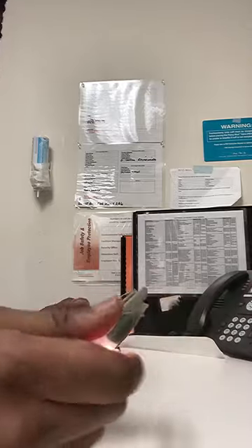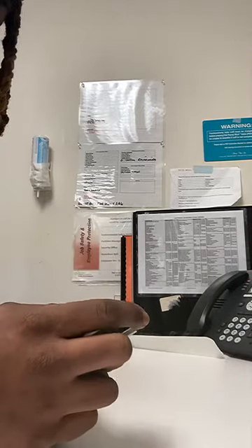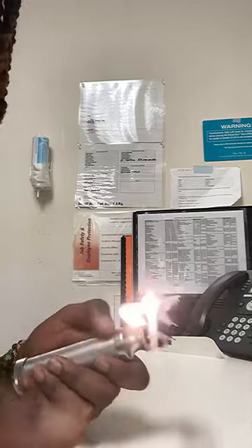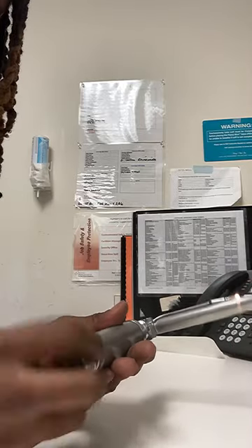Once you have the head in place — the Miller or Mac in place — the light should come on. If not, it can always be an issue with the batteries.